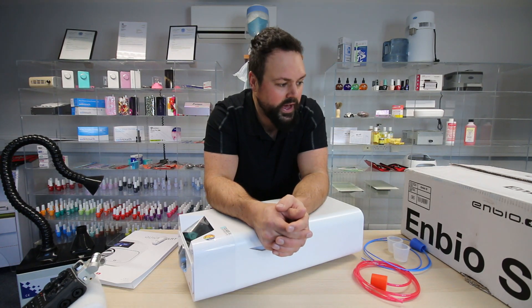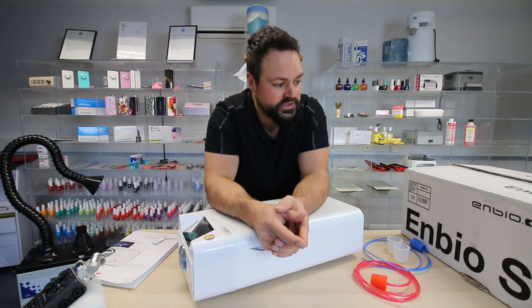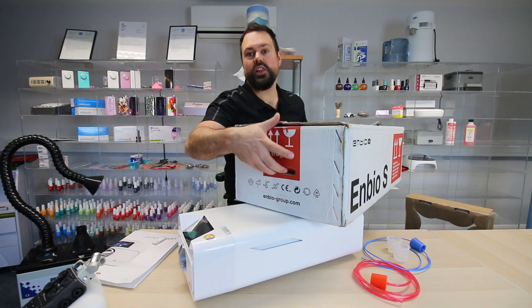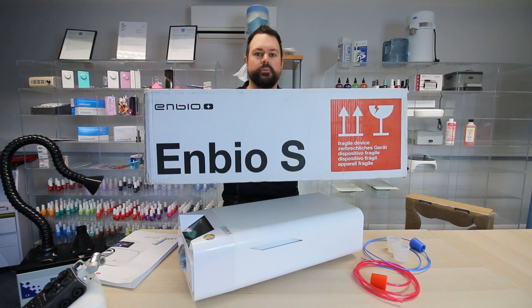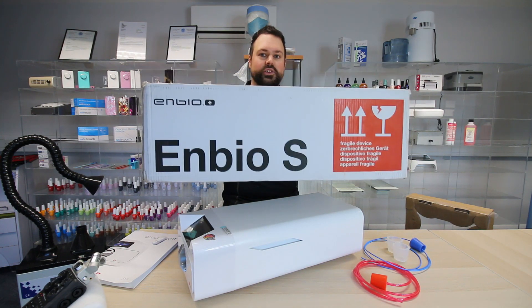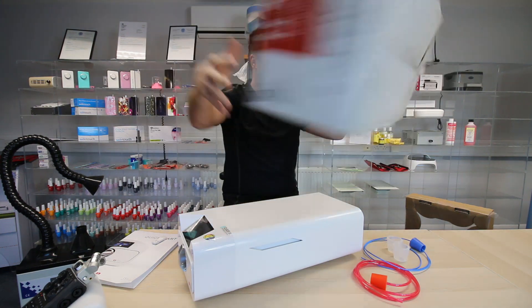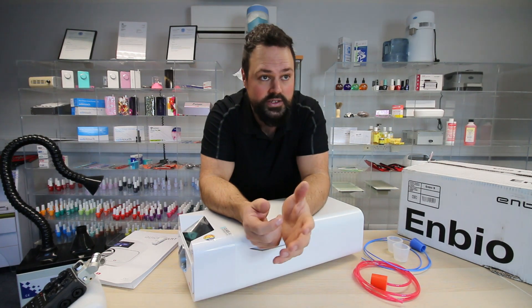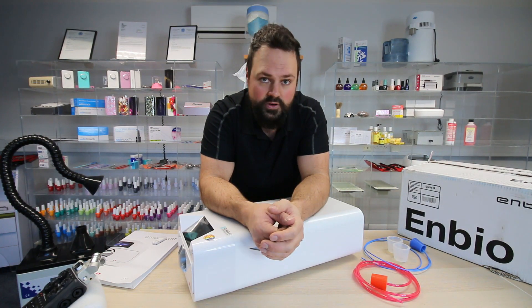Hence why they are very popular in salons where people work by themselves. The box isn't overly big. It's got very useful handles on the side — I always find that the best thing about boxes is solid handles so you know exactly where to carry it. It can be delivered by courier, next-day delivery. There's no faffing around.